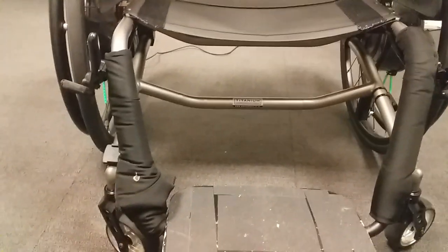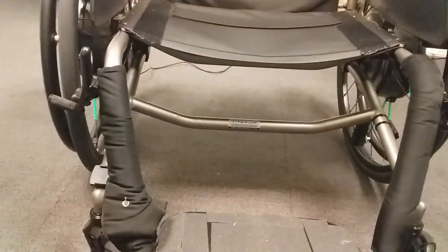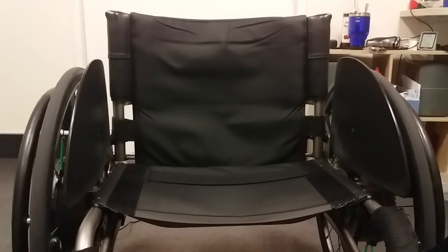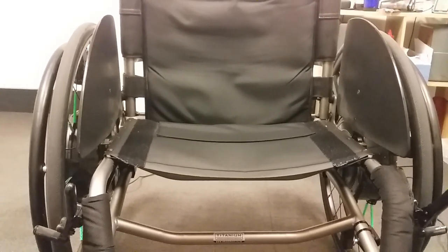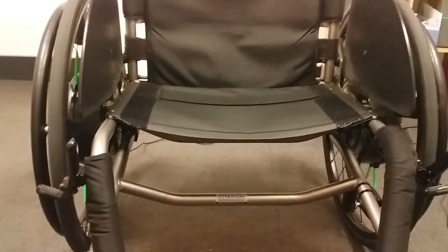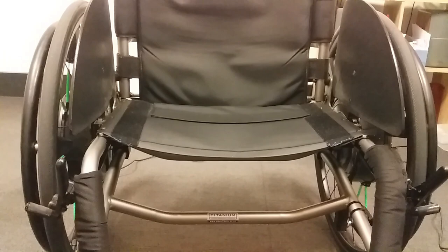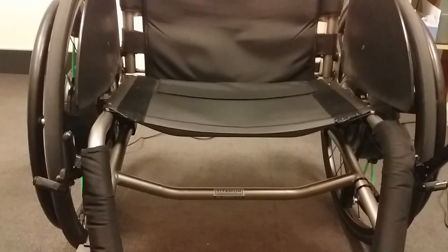This is the front of the chair. It might be four years old — I can't remember now, it tells me on Facebook from photos I took at the time. The best thing about the E-motion wheels is you can control them, and you can also measure how fast you're going, where you're going, distance, calories — everything. The app is incredible. I'll show a video below in a moment of how the app works.